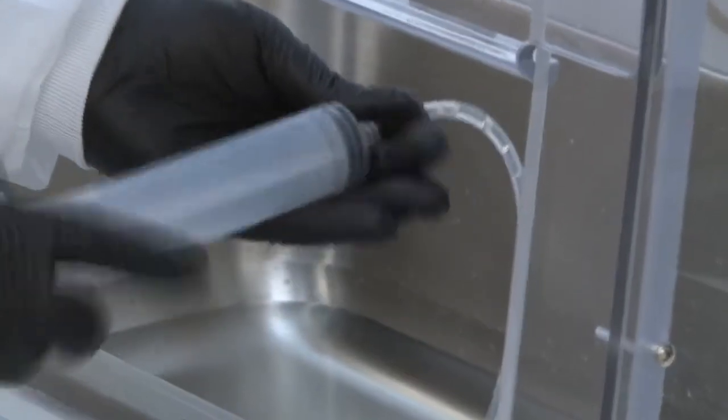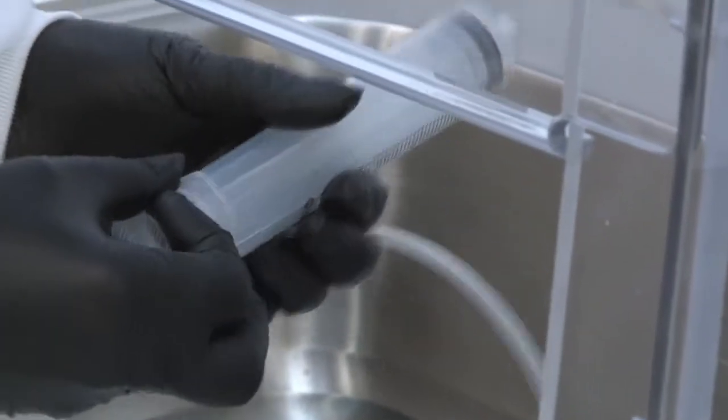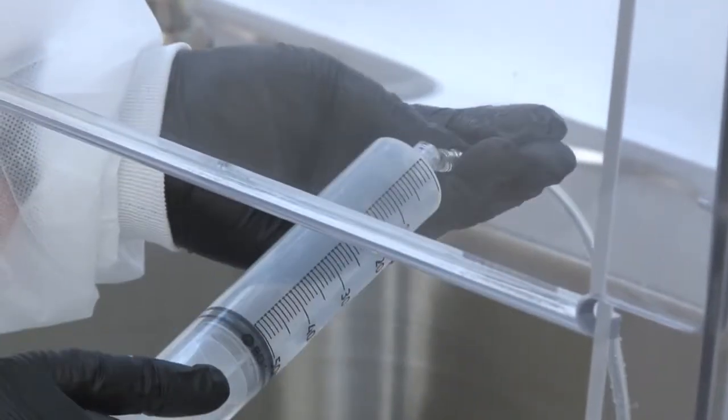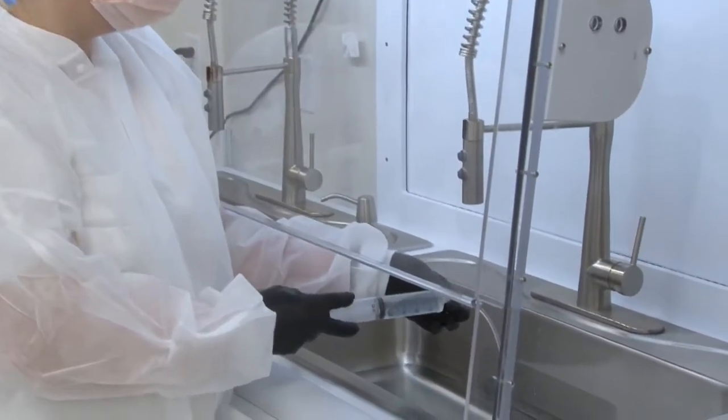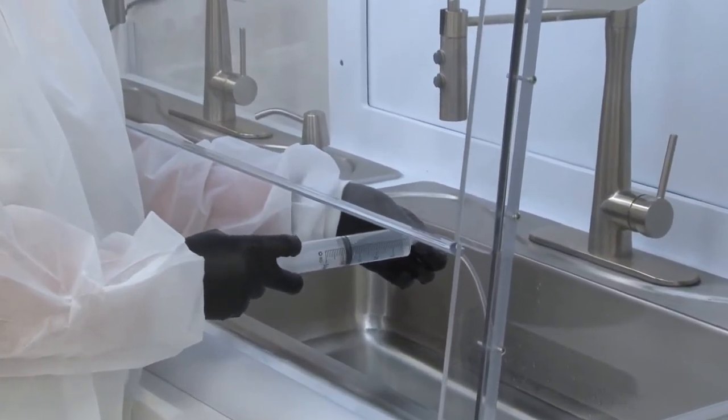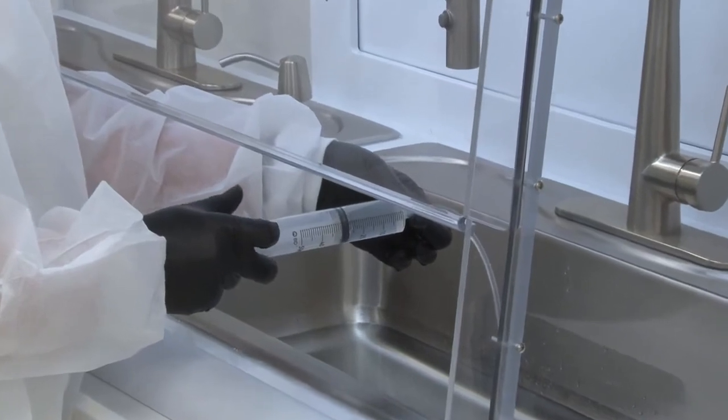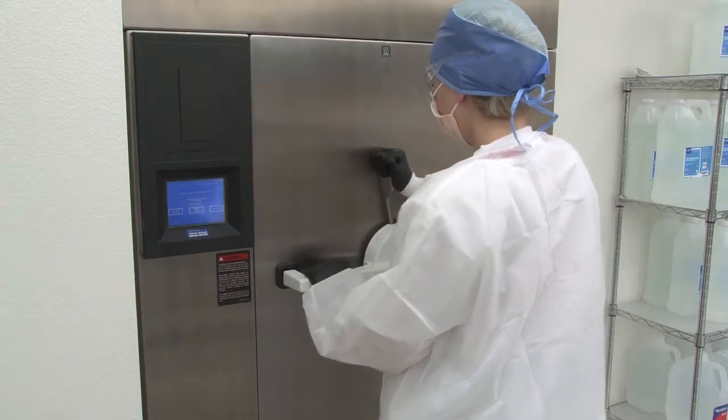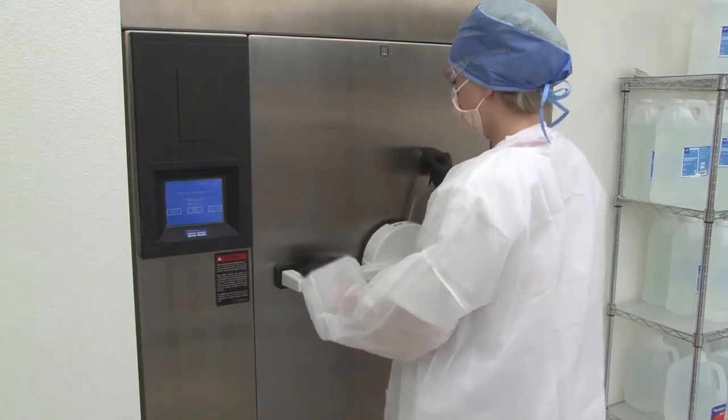Our decontamination process involves removing all bodily fluids using an enzymatic cleaner, followed up by decontamination using steam and ethylene oxide sterilizers, bleach, or other liquid disinfectants. We also offer steam decontamination using Steris equipment.